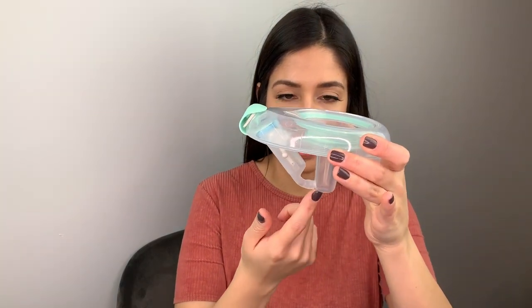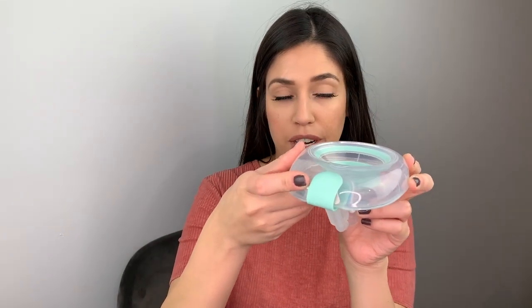That's tip number one. Tip number two — I believe this is in the manual — when removing the container from your breast, press the dial to number two to close the air vent. Then bend over and break the latch from your breast, removing the container. The reason is you want to maintain all the milk in this part of the container. Make sure you're still on dial two when doing the flip to finish.